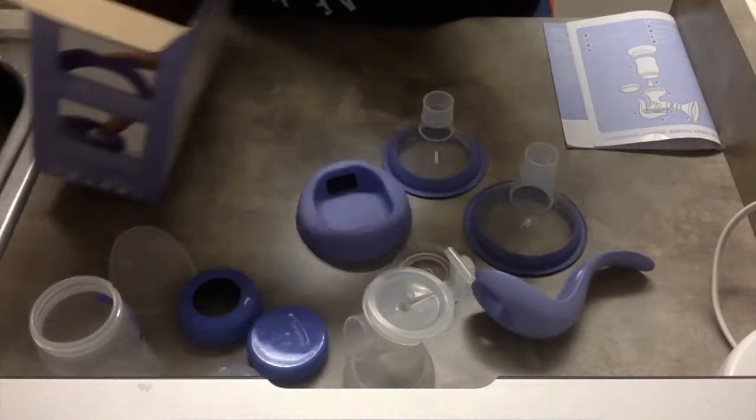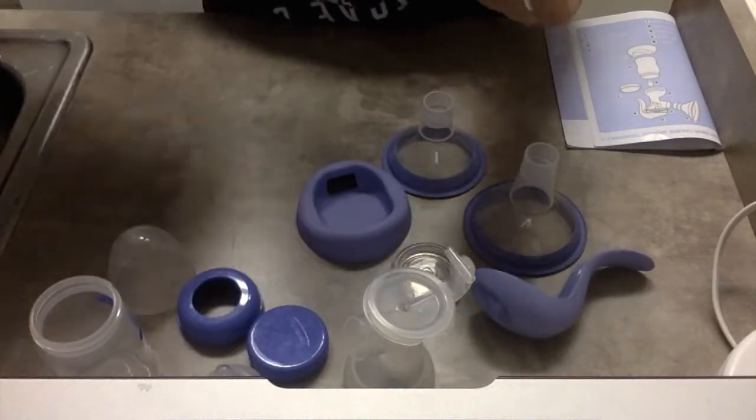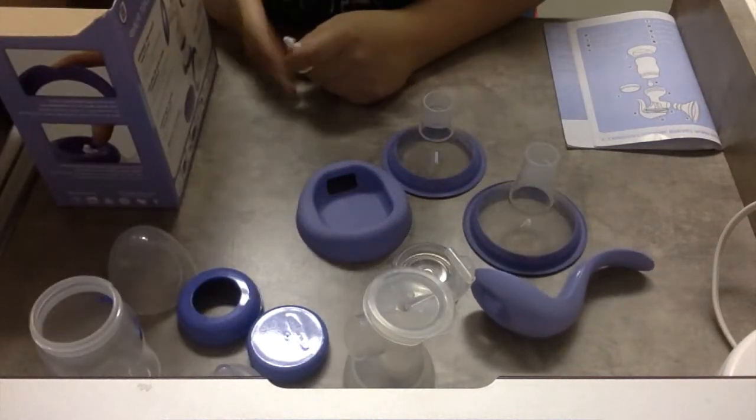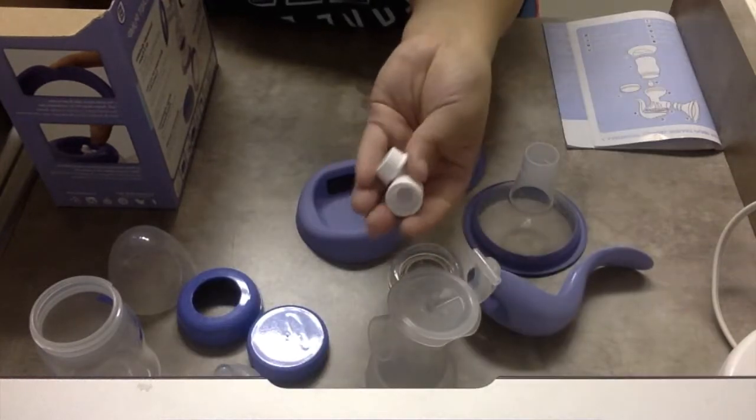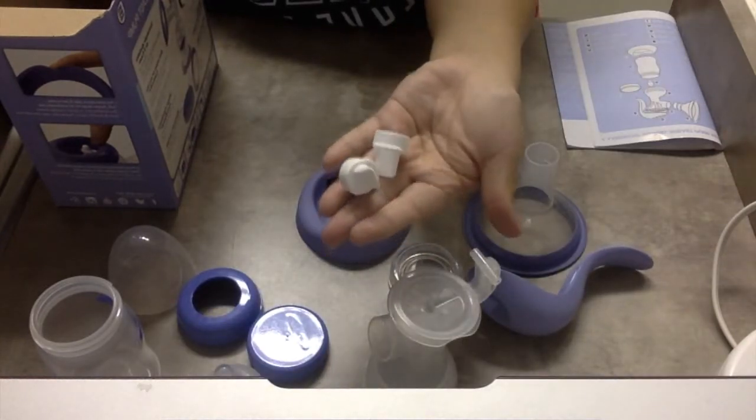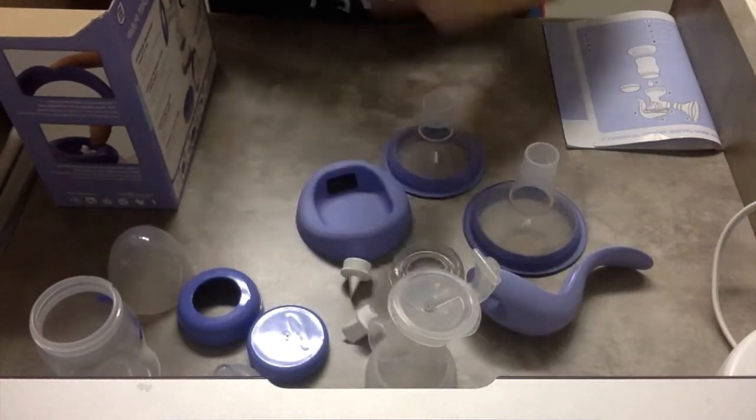And then the last thing it comes with is two valve pieces. I found the other valve piece guys. There's two valve pieces, so it comes with two which is great. And then there is the stem.